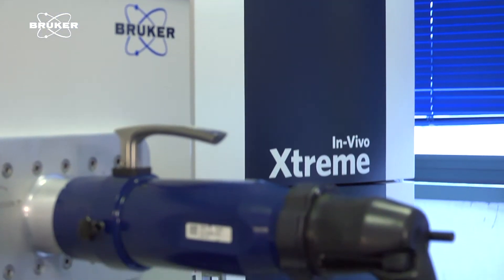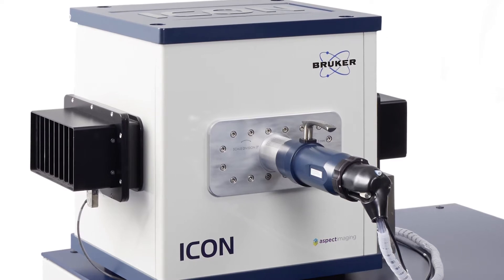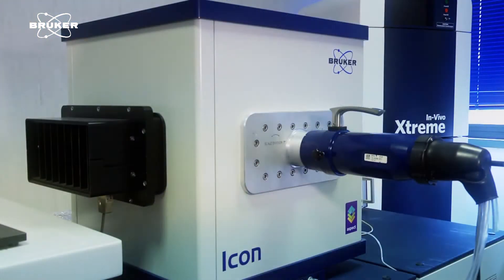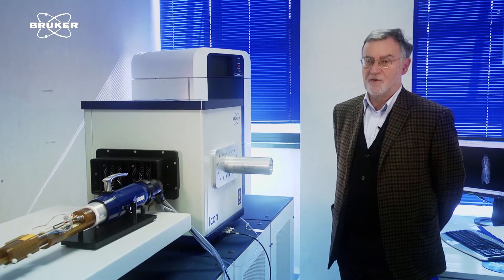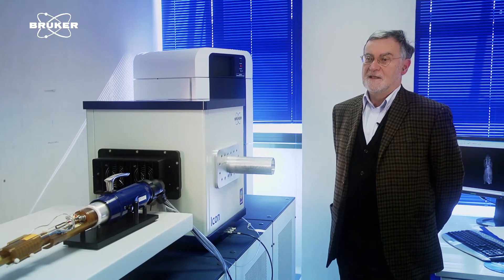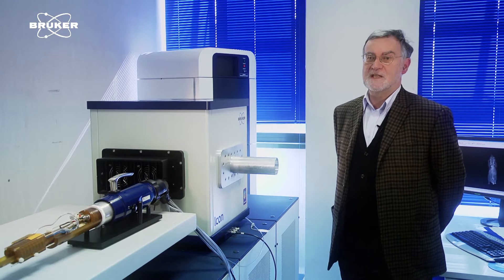This is a university-industry laboratory that is well equipped with a number of imaging modalities. We have scanners working at 7 Tesla, 3 Tesla, 1 Tesla, and in the past also a system working at 0.2 Tesla. We were very much attracted by the Bruker Icon 1 Tesla system because from our studies centered on paramagnetic relaxation agents, we earlier realized that a magnetic field strength of 1 Tesla is particularly suitable for this kind of agents.